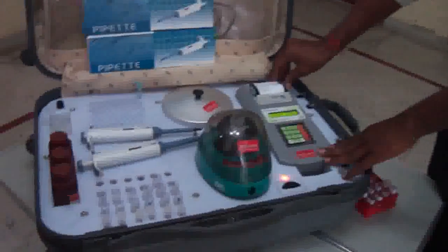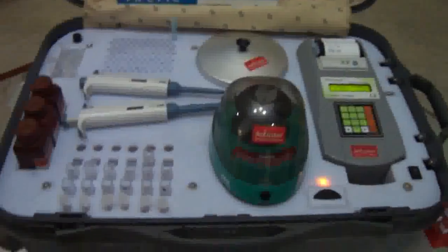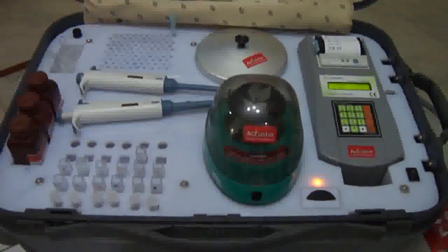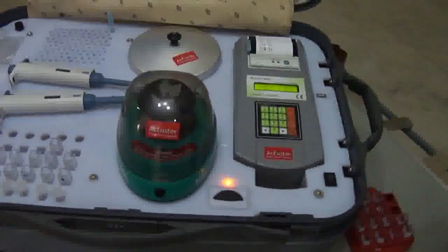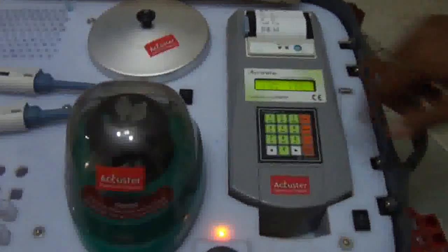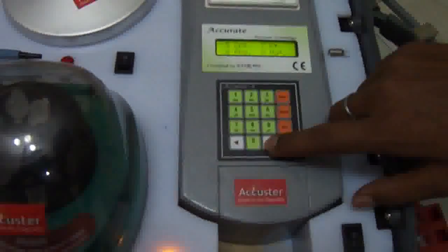This is our complete analyzer in which you can perform all 22 parameters of blood test. You can see the parameters of the test by scrolling the key. Here you can view all the test names, and you can see more tests by scrolling further.